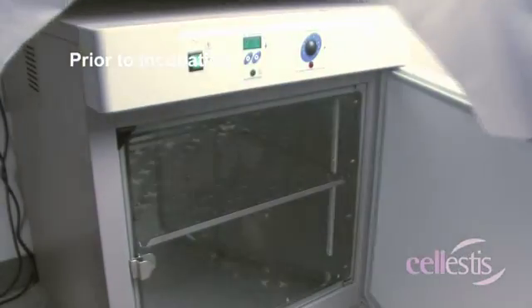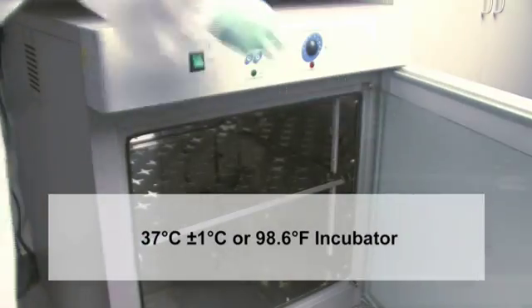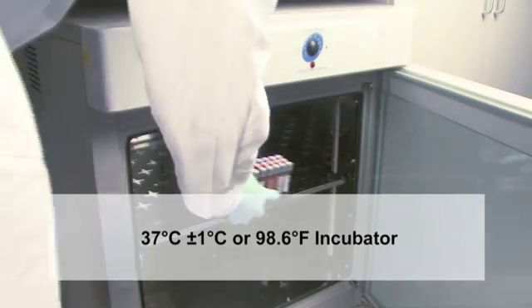Tubes are then placed upright in a 37 degrees Celsius incubator for 16 to 24 hours.